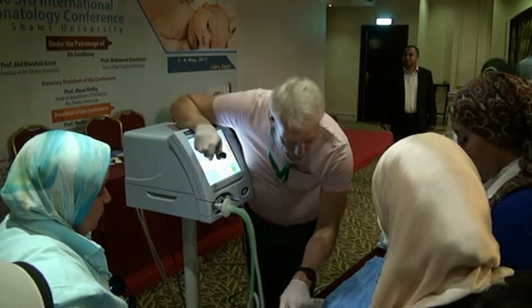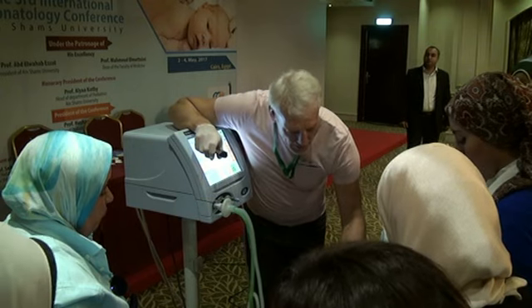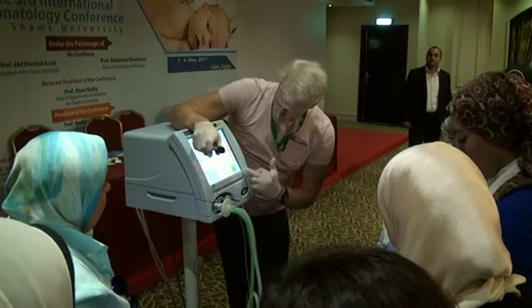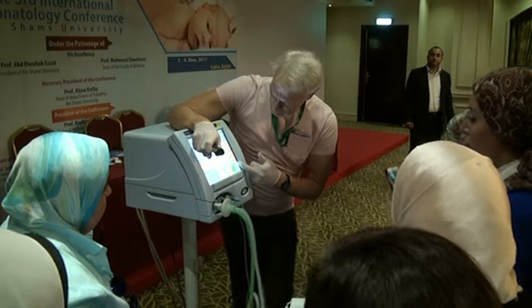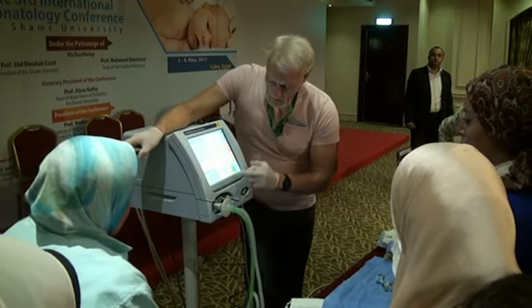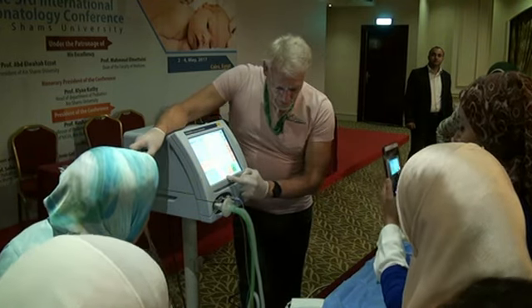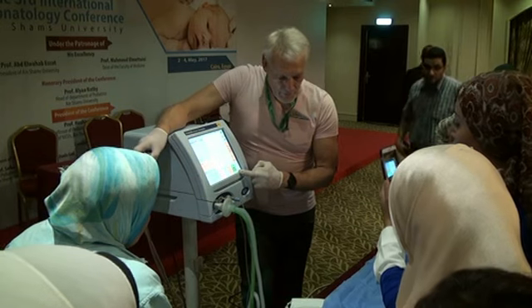So we had slightly de-recruited, we've switched to oscillation, we've gone 2 above what we were. Is that what we're getting? Nearly. Mean pressure 15, yes, maybe a bit more. We're at 10 hertz, mean airway pressure is 15, 100% oxygen.